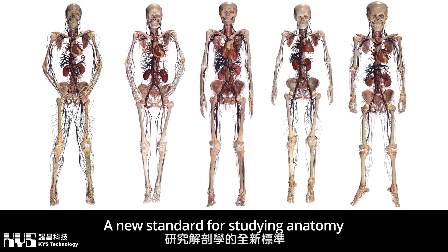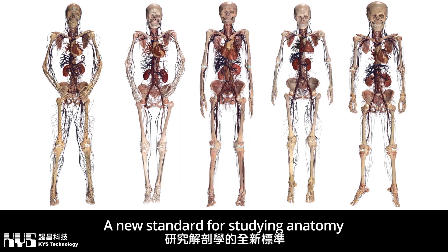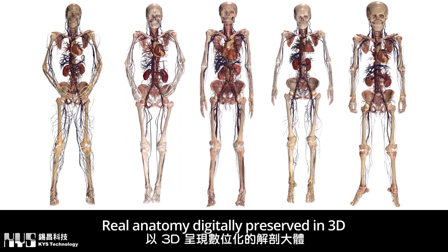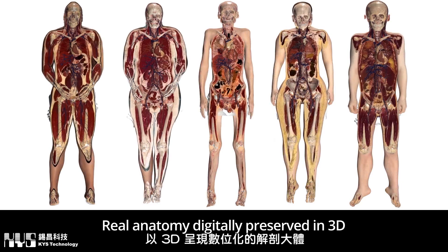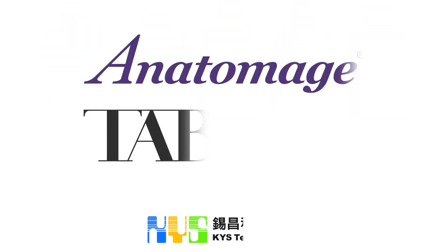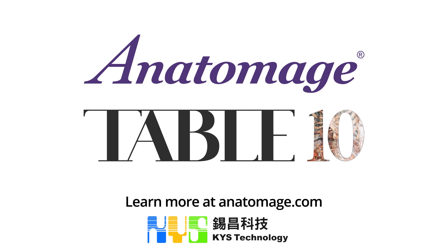Table 10 sets a new standard for studying anatomy and paves the way for an extensive scientific exploration into the human body that the world has never seen before. Join us on the journey today.